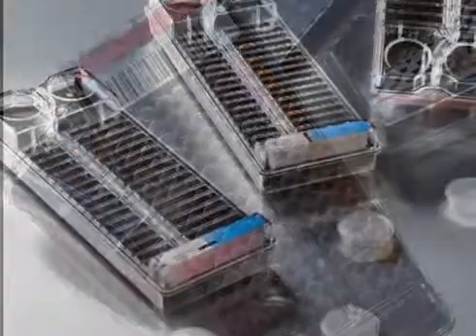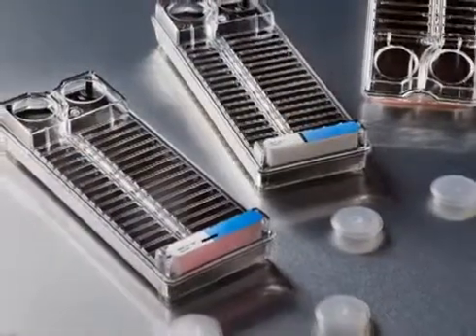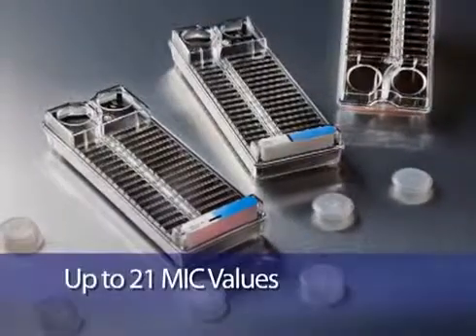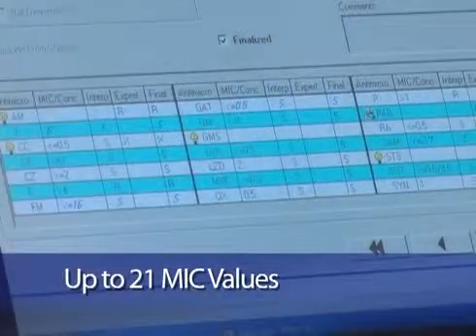For antibiotic susceptibility determinations, the BD Phoenix panel is capable of reporting up to 21 antibiotic MIC values consisting of a minimum of three full doubling dilutions.